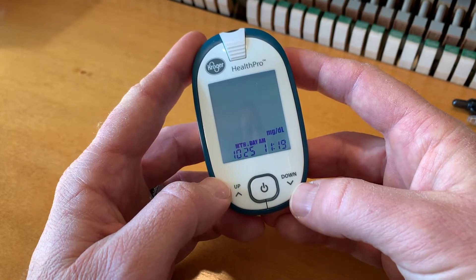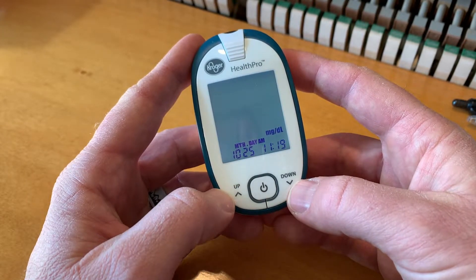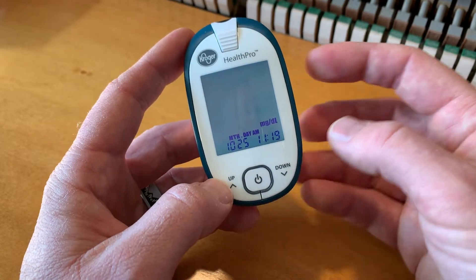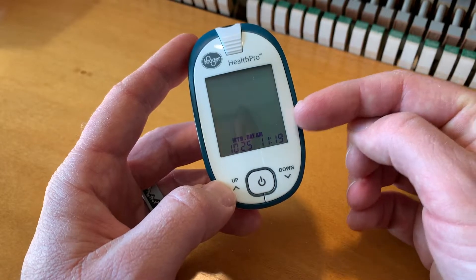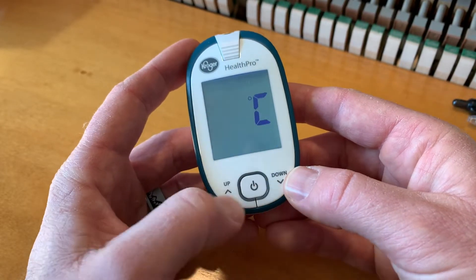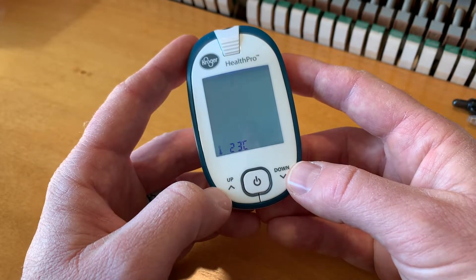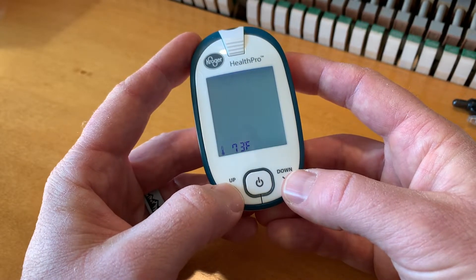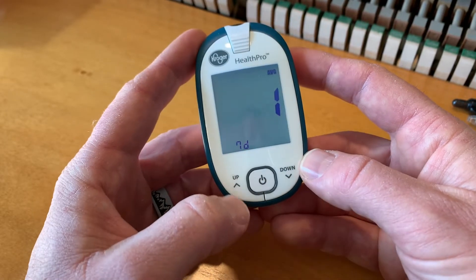Hit the power button again. Now we're going into the specific test units. If you're in the U.S., the MG-DL it currently is showing is correct, so I'm going to hit the power button there. Now we're going into temperature — this is going to be in Celsius or Fahrenheit. If we want to go to Fahrenheit, I'm going to keep it there. Hit the power button again.